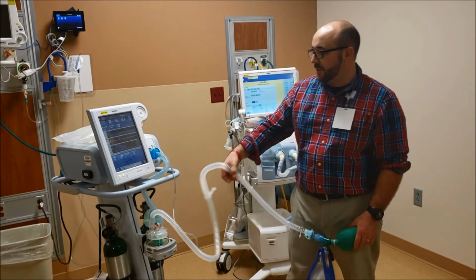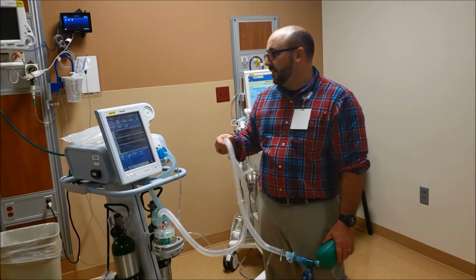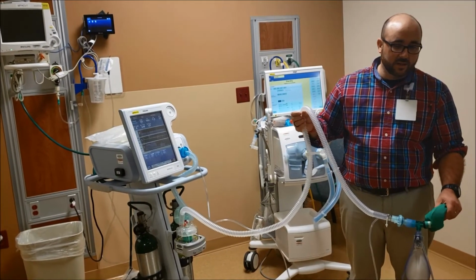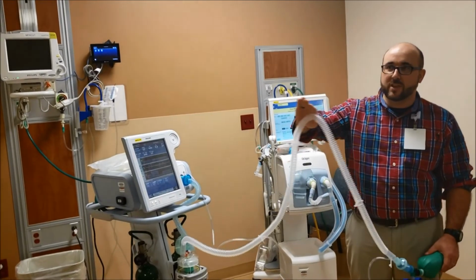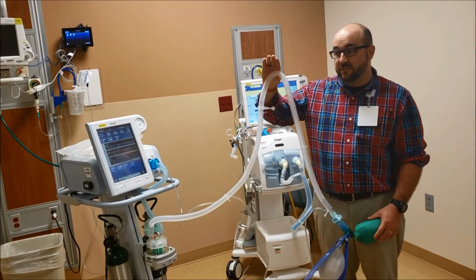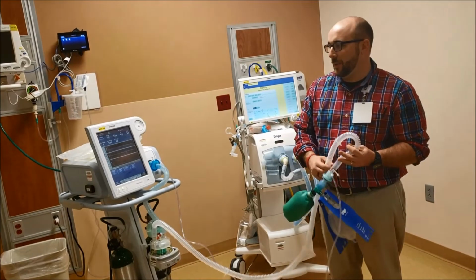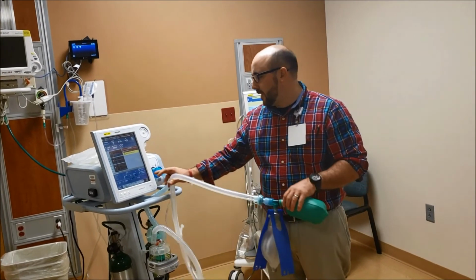The airway's being splinted. This little C-Flex thing here is a nice thing, but what it does is a comfort thing for the patient. So if I set a 3 C-Flex on them, and they're set at 12 CPAP, when they exhale against it, it flexes the CPAP down to 3 below 12, which is 9, so it's easier for them to exhale against it. It's something they commonly use at home CPAP units. So a home CPAP unit will have C-Flex, it'll flex down when they exhale, so it doesn't feel like they're exhaling against that full amount. It's just a comfort thing for the patient. So we usually don't mess with it in PACU, but if you hear about C-Flex, or if you know somebody who's on CPAP at home, that's what C-Flex is.